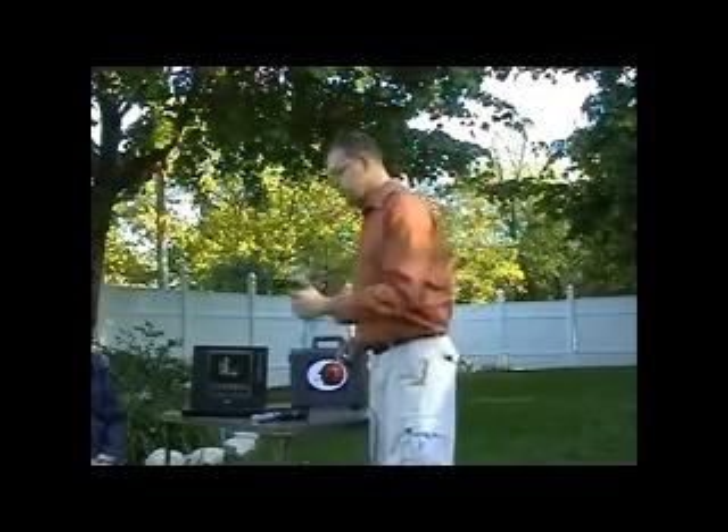Your kit will include a six-foot extension cable. This extension cable offers extended reach to your patient from your computer. It also acts as a breakaway — if it were to get snagged, it simply releases without any damage to your Panoptic or your camera.